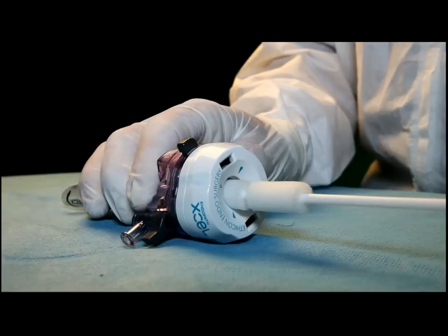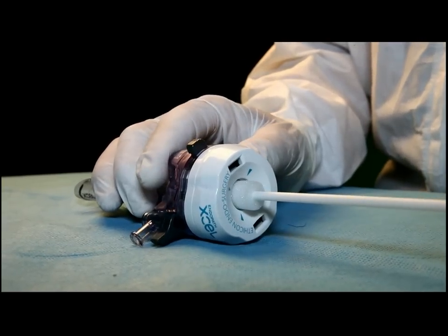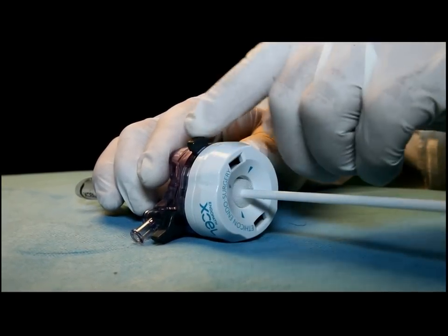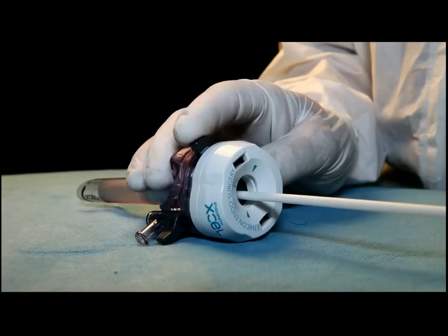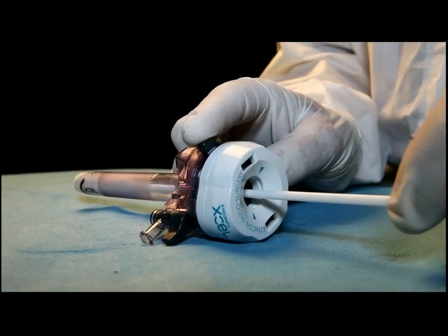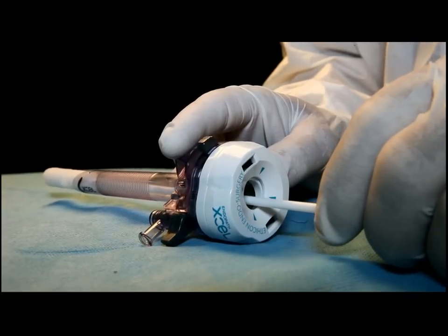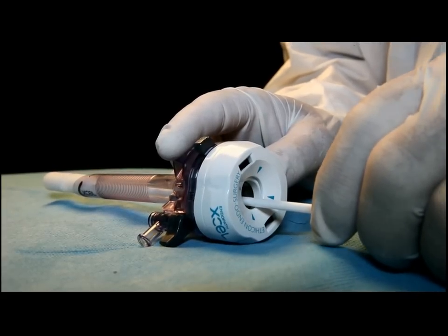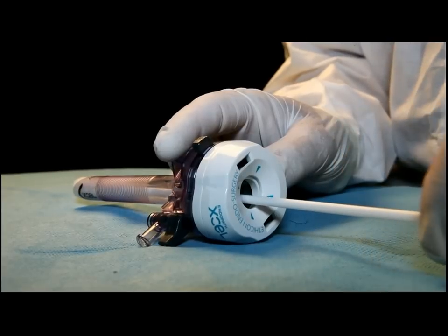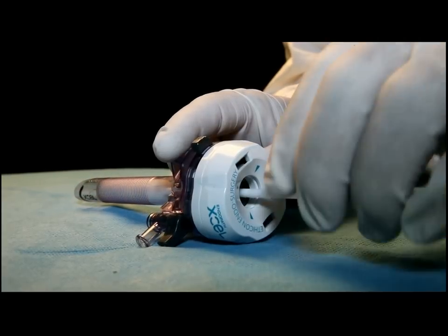Insert through the port, overcoming easily the seals. Insert all the way until the first complete element went through all the way in. Retrieve the DELV.